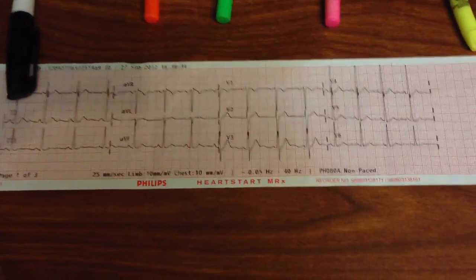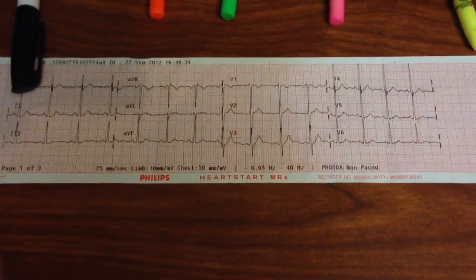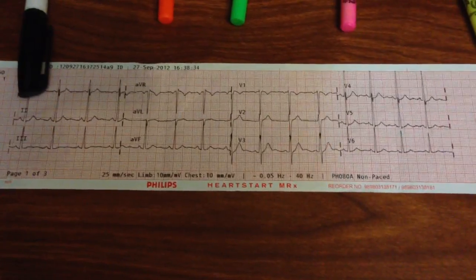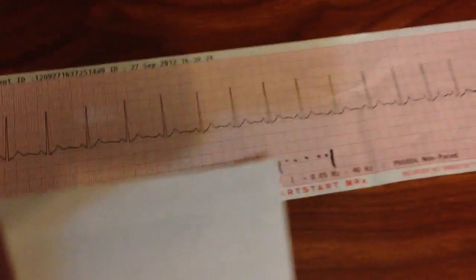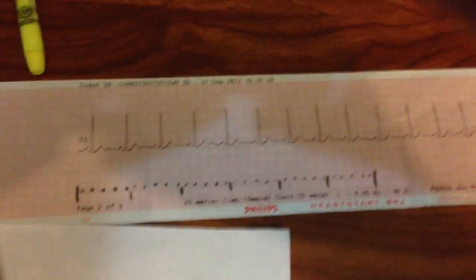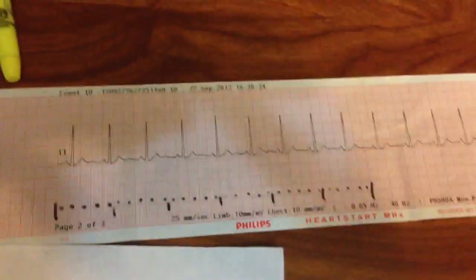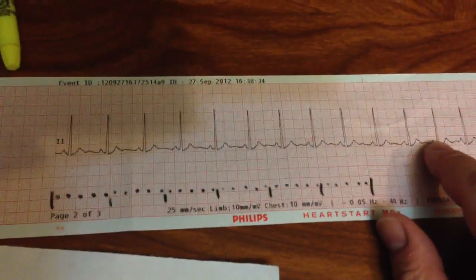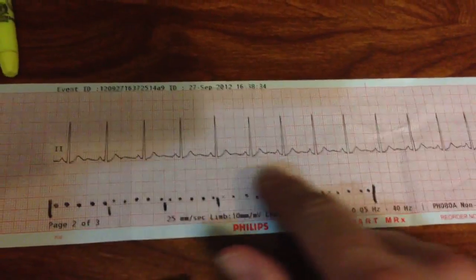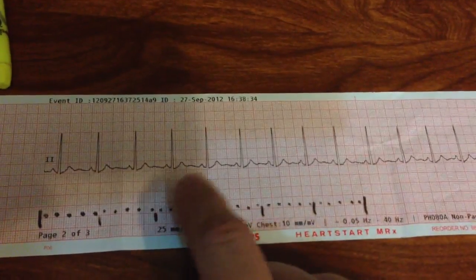I'll show you how I look at it. This is a normal 12-lead. What you want to look at first is your 12-lead, and then you'll have an associated rhythm strip printed out here. What I'll normally do is go ahead and look at the rhythm strip first to identify any life-threatening or grossly abnormal rhythms.